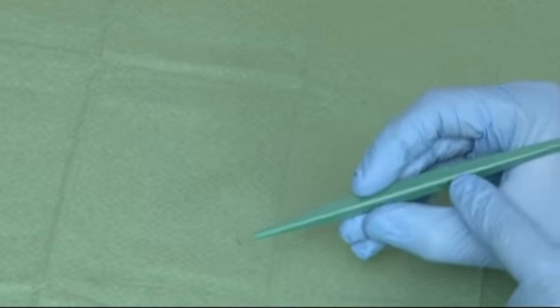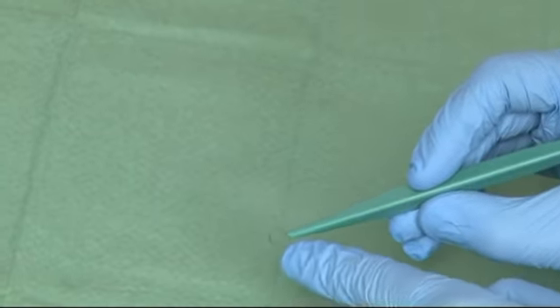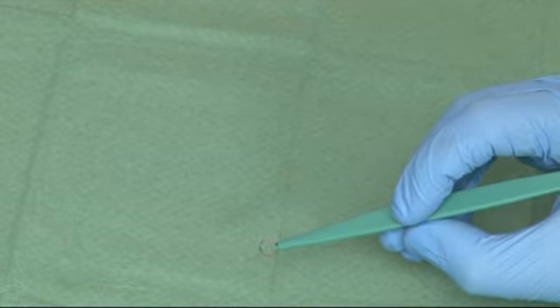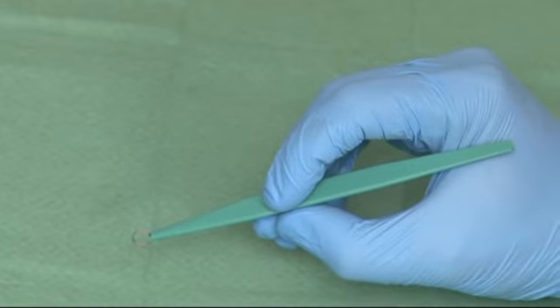There is usually a clear marker to demonstrate which is the sharp cutting edge, but this varies between manufacturers. Both types are available in a range of sizes to suit the procedure intended.